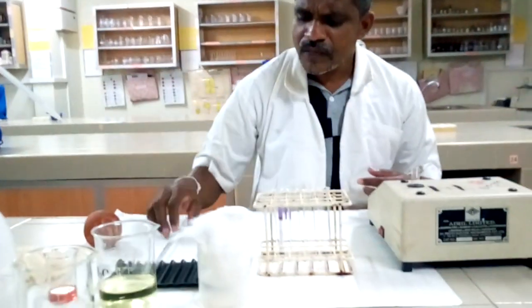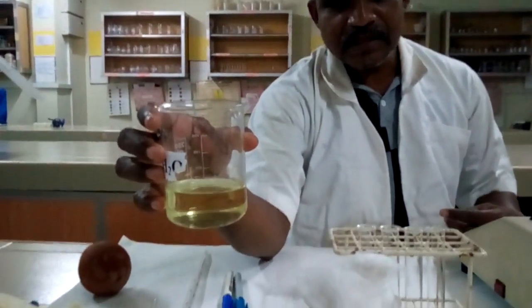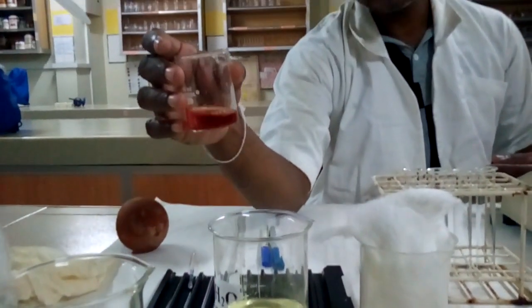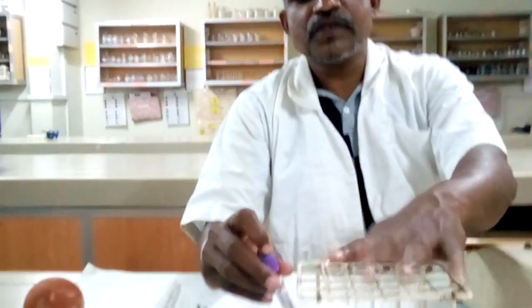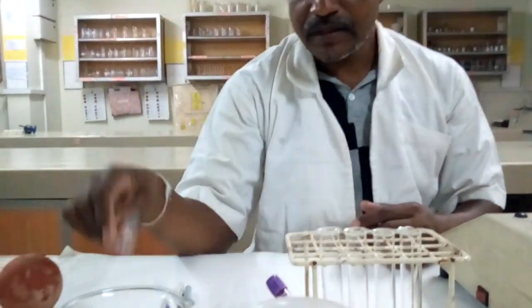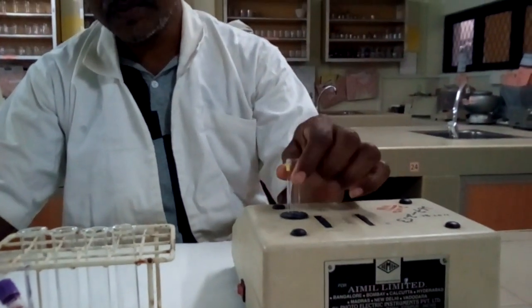Right, okay. For the estimation of hemoglobin with the cyanmethemoglobin method, we want Drabkin reagent where the pH is going to be 7 to 7.4, a standard HiCN standard, blood sample (EDTA or capillary blood we can take), test tubes, cotton wool, a 5 ml pipette and a 20 microliter pipette. Other than that, we want a colorimeter or spectrophotometer with a cuvette to measure the absorbance of the solution.